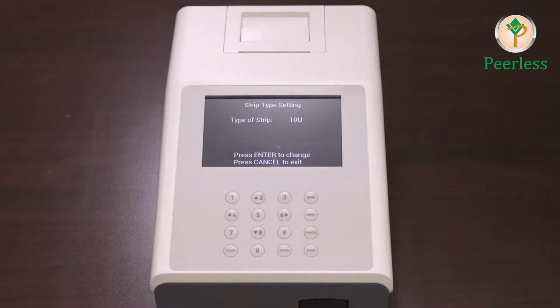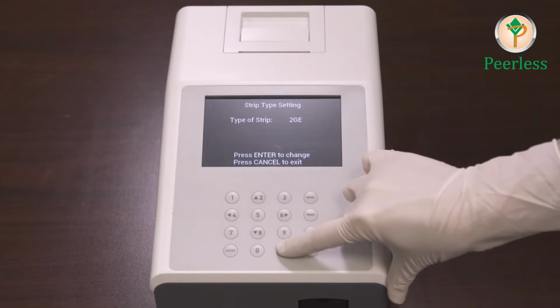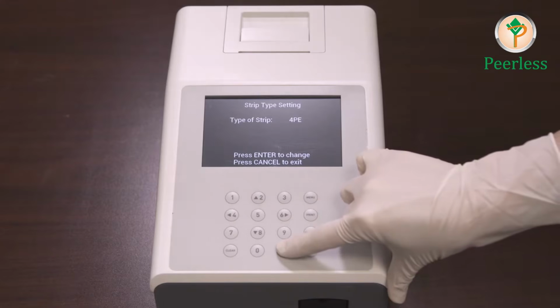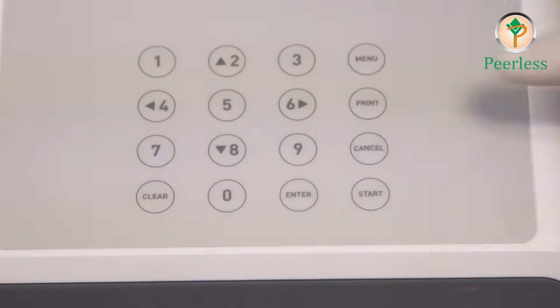If the strip type on the screen is not the strip type you intend to run, press the Enter key to cycle through the type of strips available on the analyzer until you reach the one you need. Once the desired strip type shows on the screen, press Cancel to reach the initial screen.